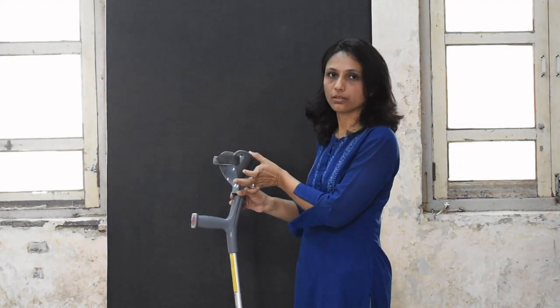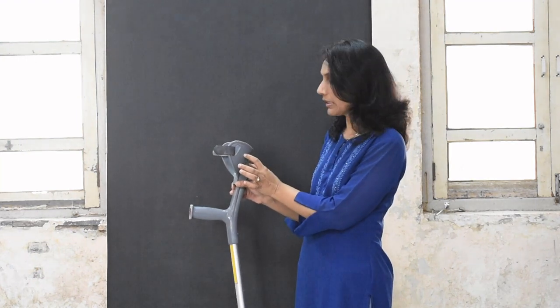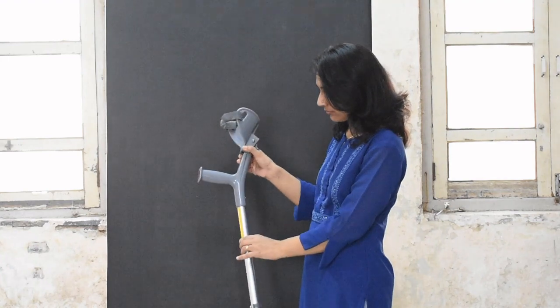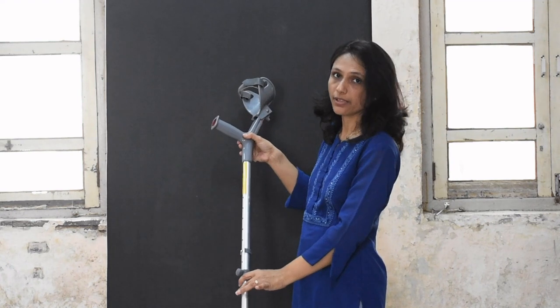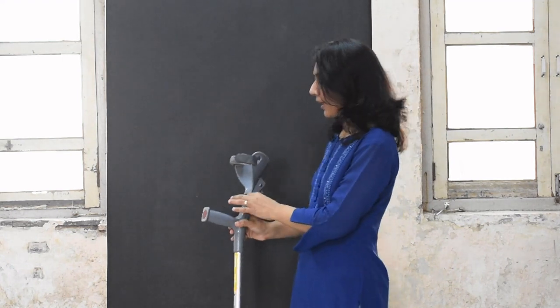This forearm band is either made up of plastic or metal. The hand piece is made up of plastic, there is a single upright made up of metal, and then the rubber tip at the bottom. These are the parts.